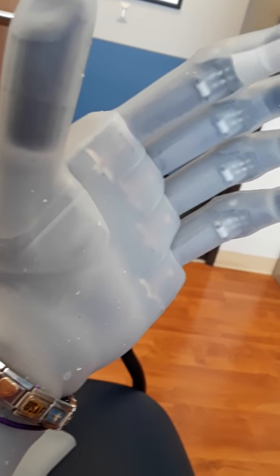Yesterday I was showing you the knuckles of the glove and how there was more gap to it. Now there's not, and it's moving a lot slicker. It looks a lot clearer, so you can see the actual bionics inside the arm for teaching purposes.